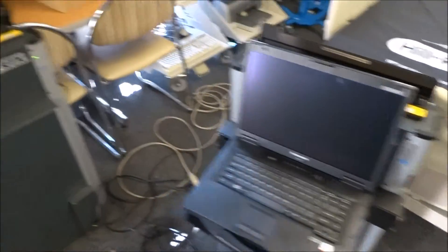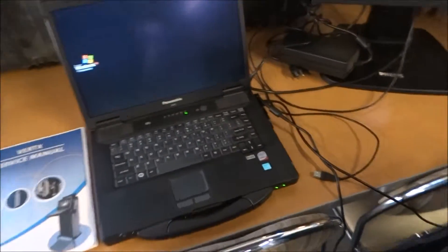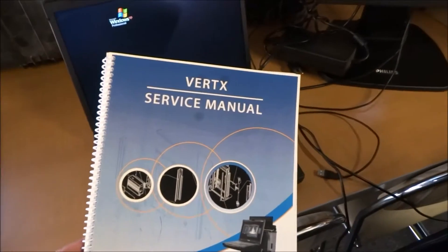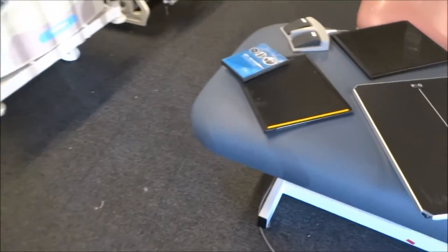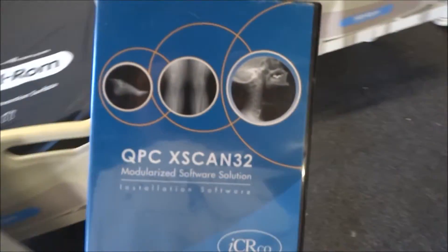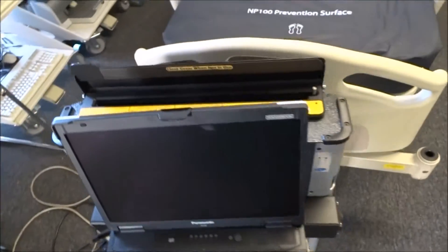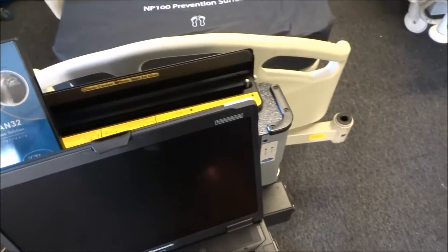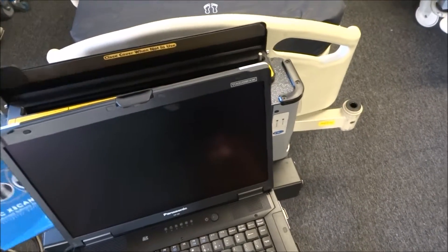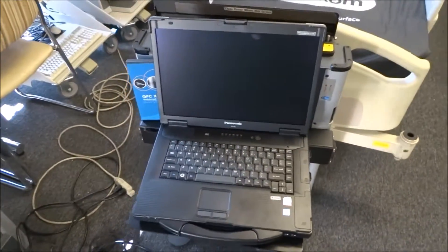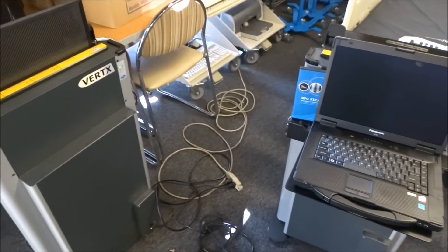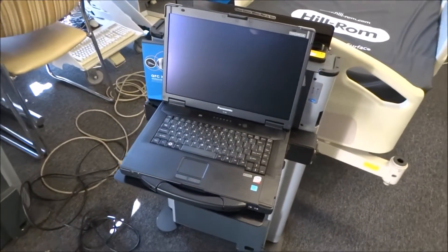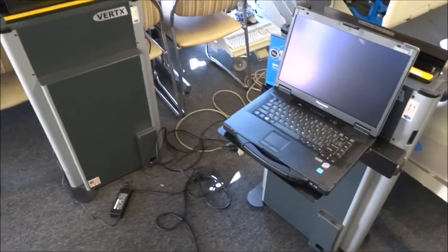All of the machines come with the owner's manual, the service manual right here and you also have the software to upgrade into. So everything you need to operate the machine is with it and like I said this is very popular for upgrading the AMX4. So if you're looking for portable x-ray equipment or digital processors, digital x-ray processing equipment, give us a call Hospital Direct Medical in San Diego California.